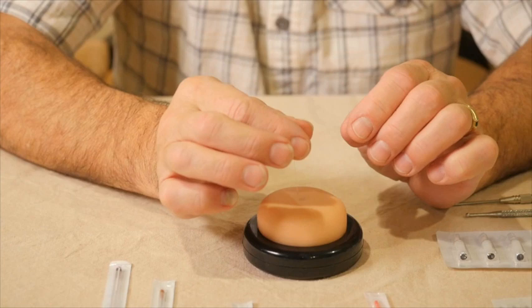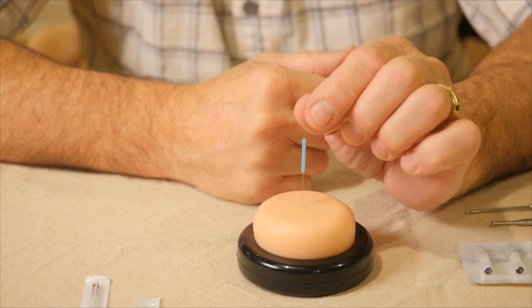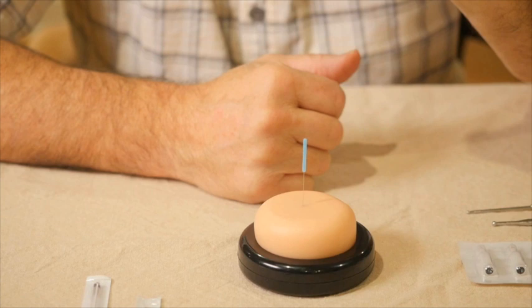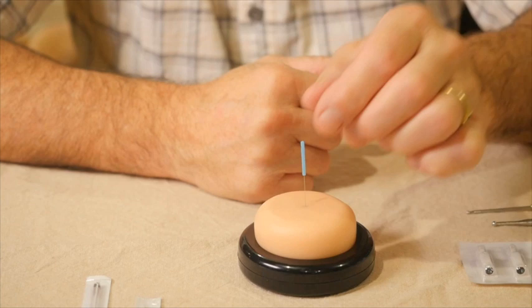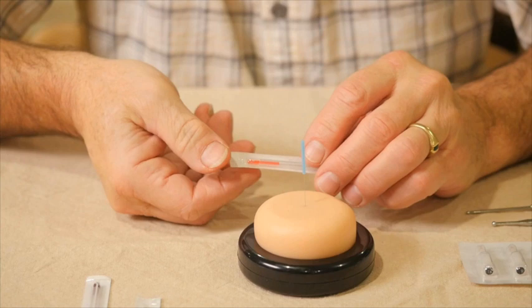This is the most common needle I use — in practice, I would use 10 of these to every one of any other needle. I feel very comfortable with a 30mm number 3 needle and can do most of the needling needed with it. There are also needles thinner than this: a number 2, number 1, number 0, and double-0 as we get thinner and thinner. I'll show a number 1 needle as an example of how it compares to a number 3.